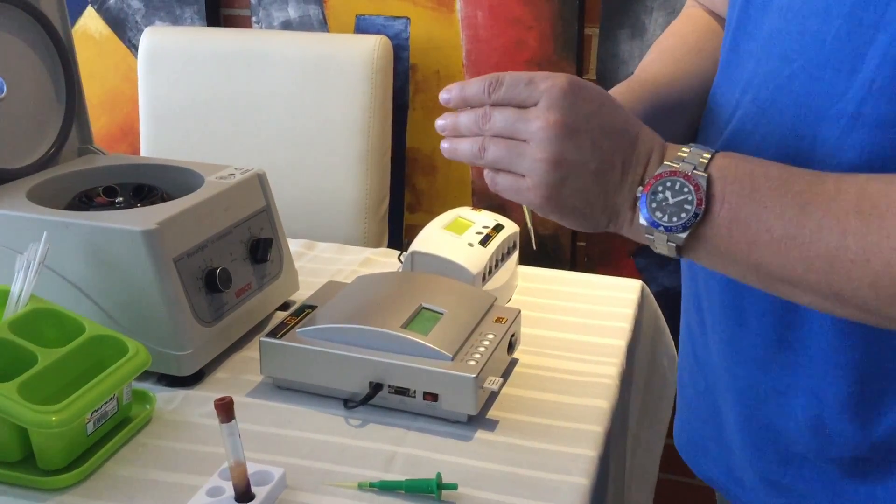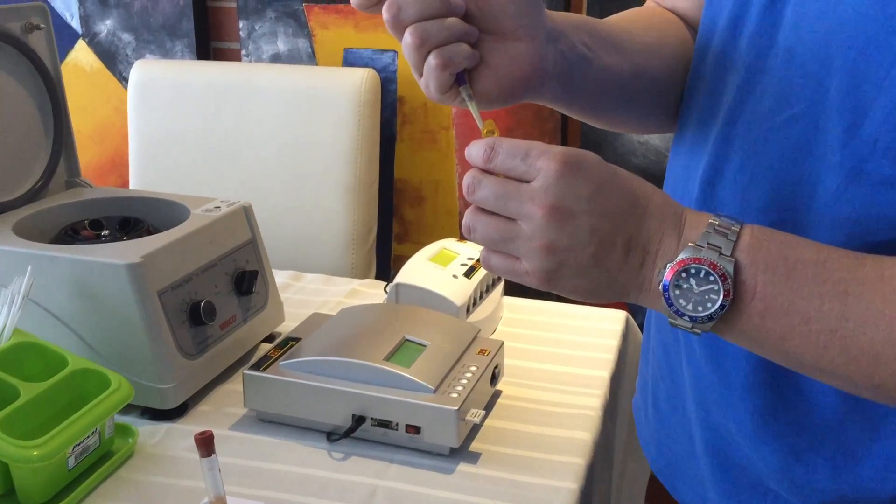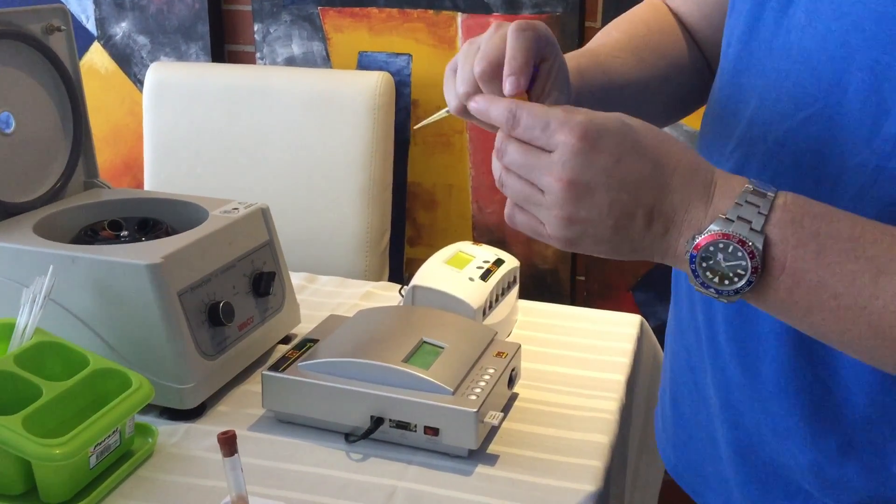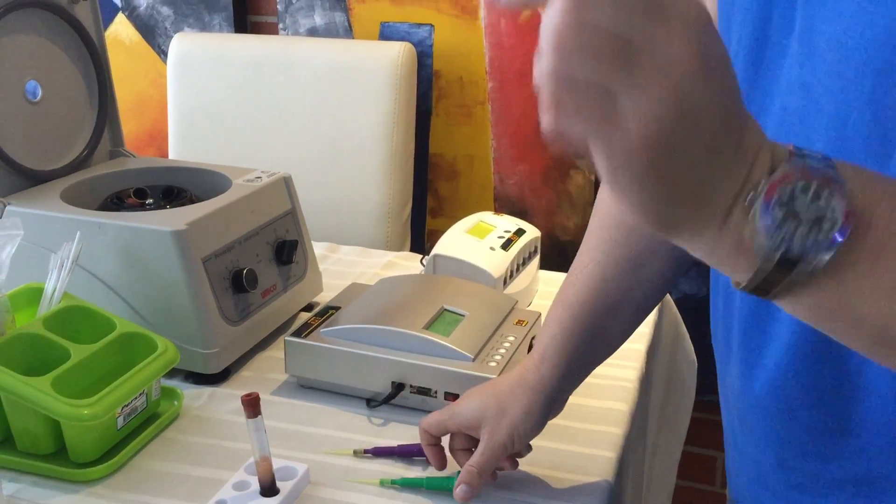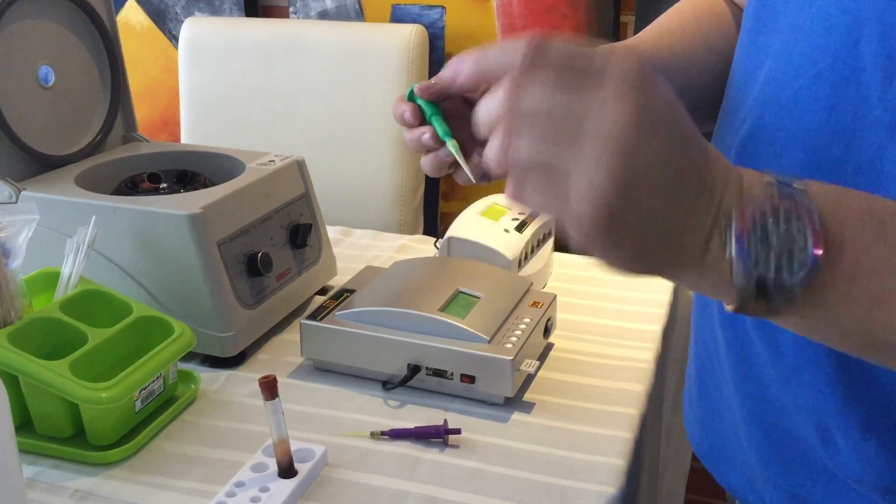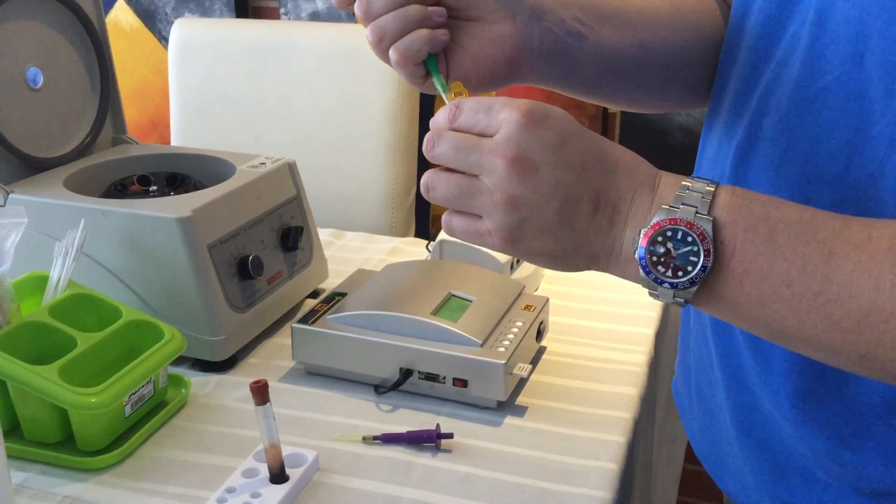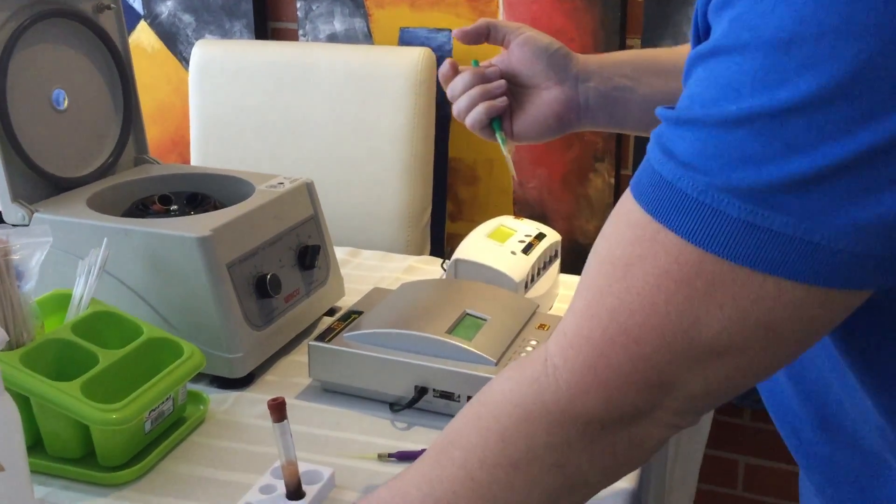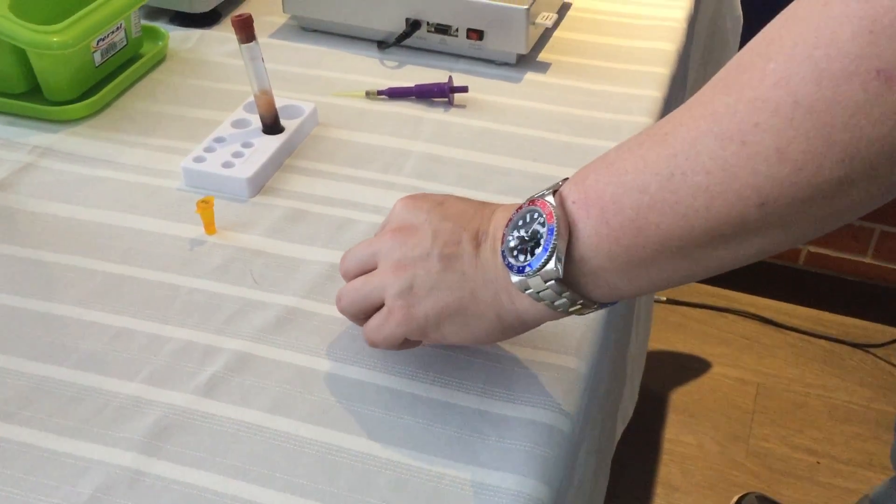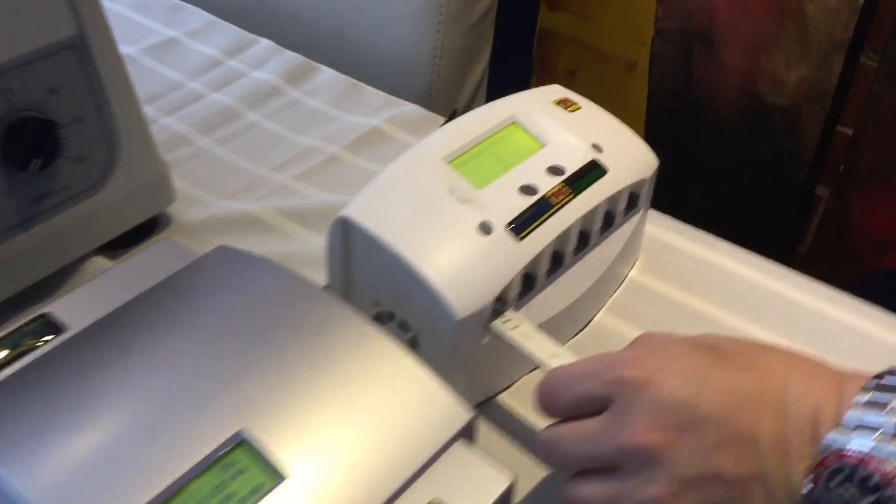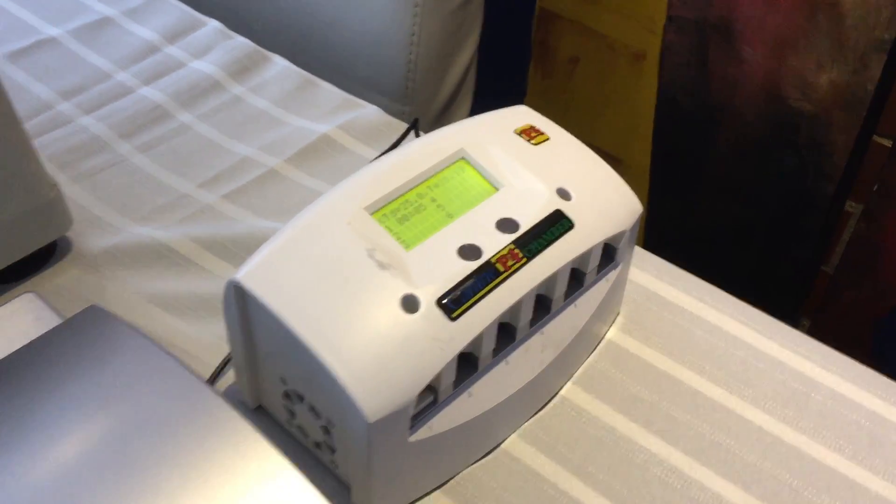The Draminsky dropped. That means there's an LH surge and that means the progesterone levels should be going up. So, you put the 30 microliters in the serum with the buffer. You shake it about 15-20 times and you get 75 microliters of the buffer serum mix. And put it in the little hole. And we put it in the incubation chamber for 15 minutes. And when 15 minutes are up, we'll do the progesterone test and I'll be right back.